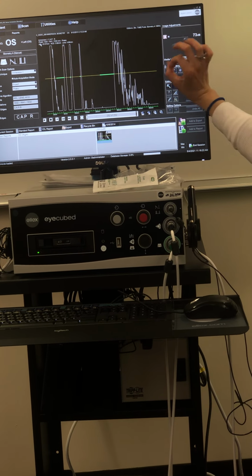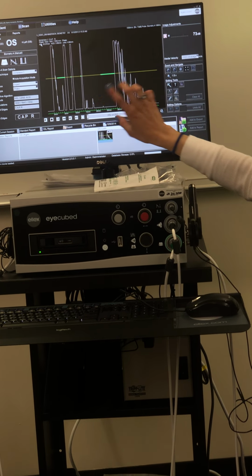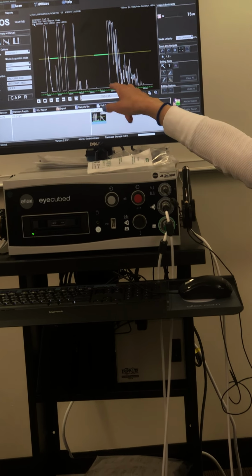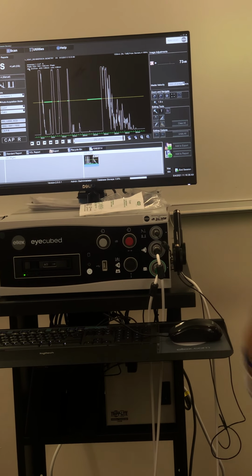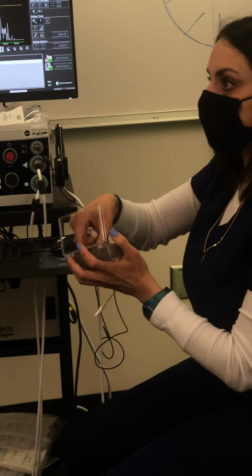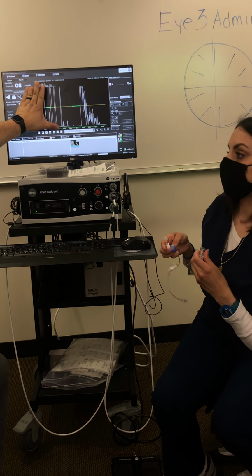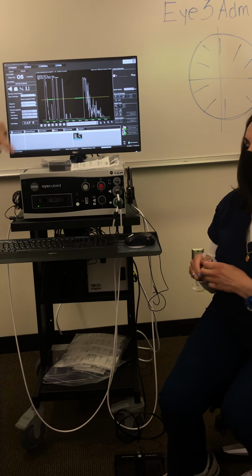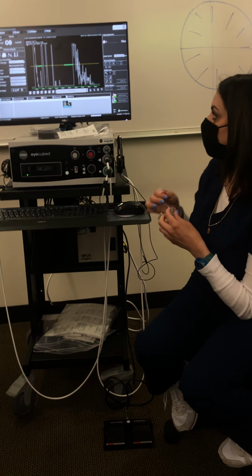Most important thing is you want a straight 90-degree angle, if possible, on your retina. Of course, if there's macular edema or a detachment, you're gonna have an extra spike here. So you've gotta be aware of the pathology before you even start. And that's where the B-scan comes in. When we were doing contact A scans in lab, the only difference is we didn't have that first spike because we weren't doing immersion. So the first spike on our contact was the probe in the cornea. And the rest of these are the same ones we saw.